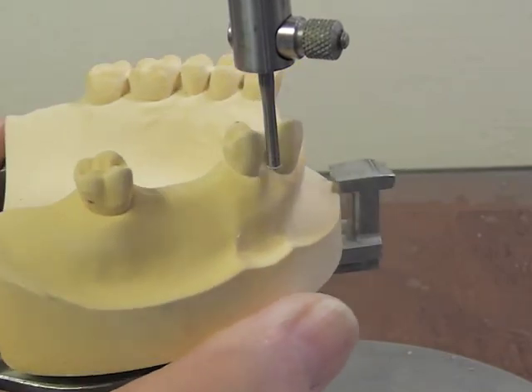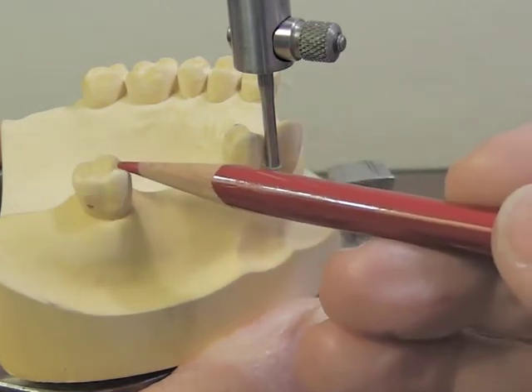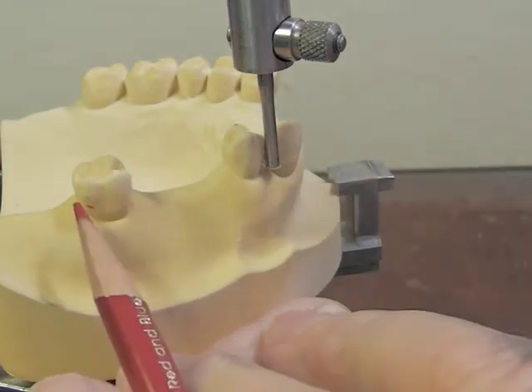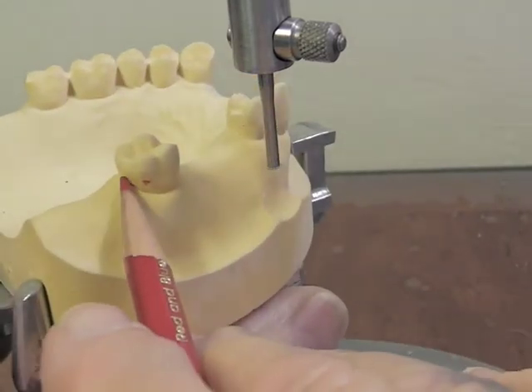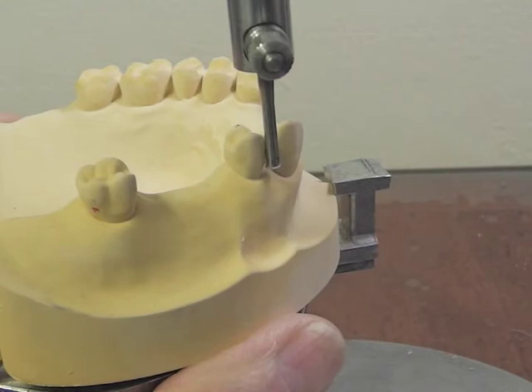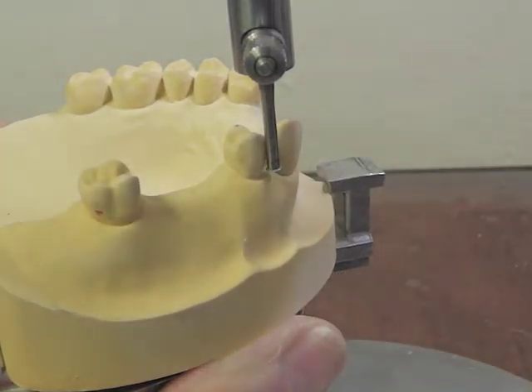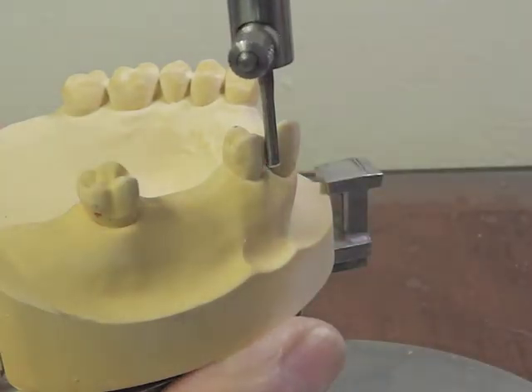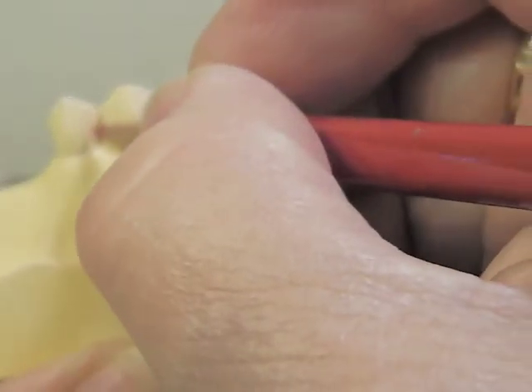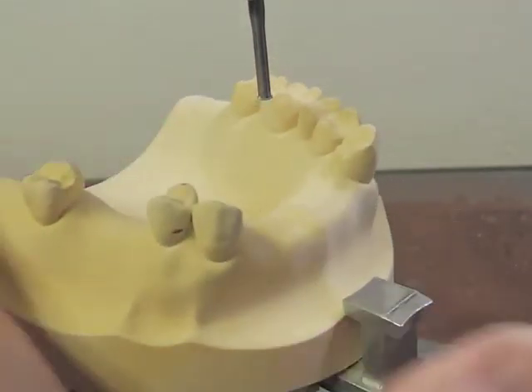We're going to look to see whether we have a .01 undercut on our premolar, looking at the distal facial line angle. Remember that clasping gets its flexibility by its length, so when we're coming from this direction posteriorly, we want to engage a distal facial undercut — not all the way back to the distal surface, but right there on that distal facial surface. I take my .01 undercut gauge, put it at the gingival margin area, put my vertical rod up against the tooth, pull that undercut gauge up until it touches the tooth, twirl it a little bit, and mark my .01 undercut on that tooth.